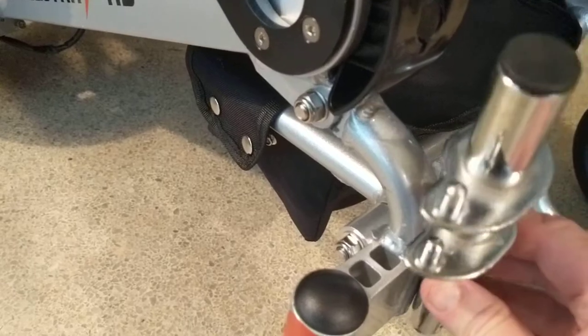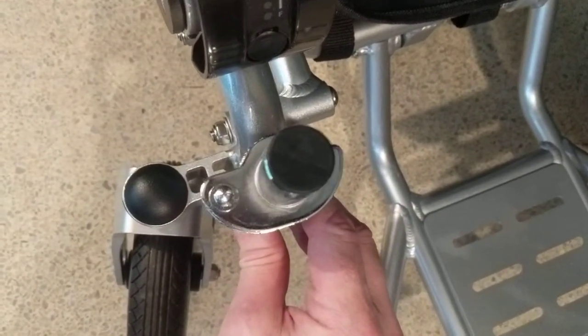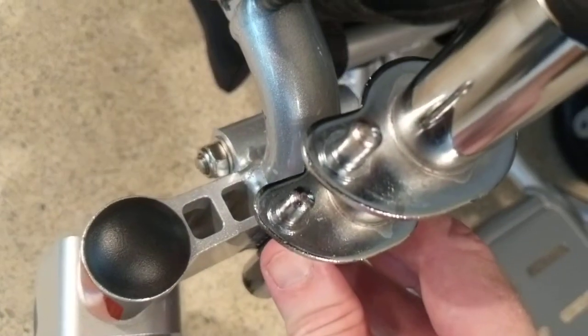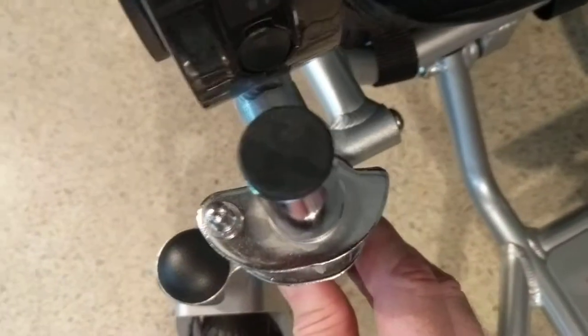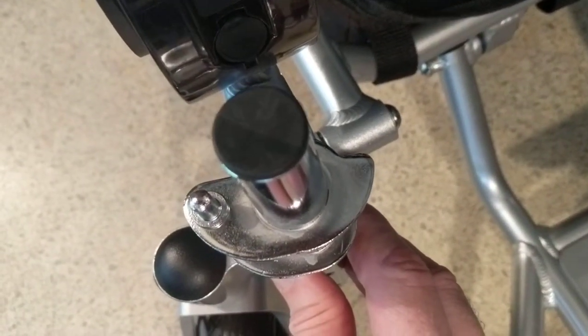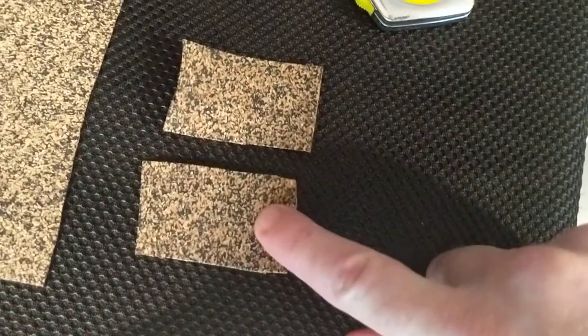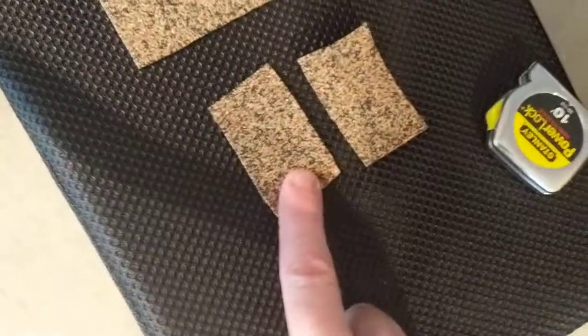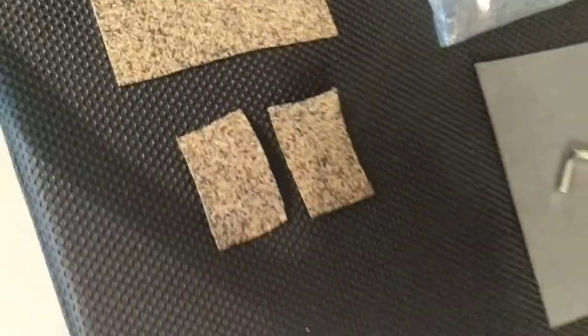You can see the post attached to the other side of the chair. You're going to attach this on the outside of the chair. We use the outside pins to stabilize the actual footrest, and the other side allows that to latch. We also have a piece of material for better traction, to hold the piece together more efficiently, and most importantly so we don't scratch the device.